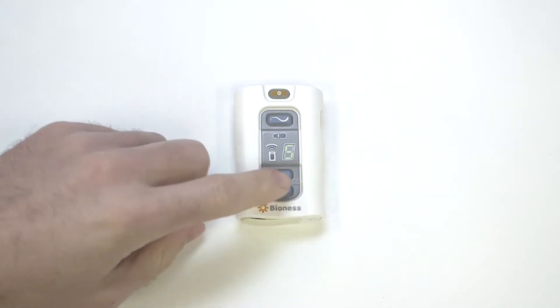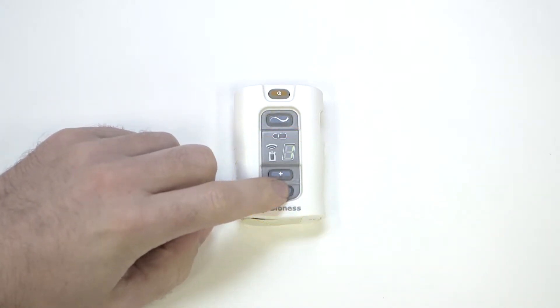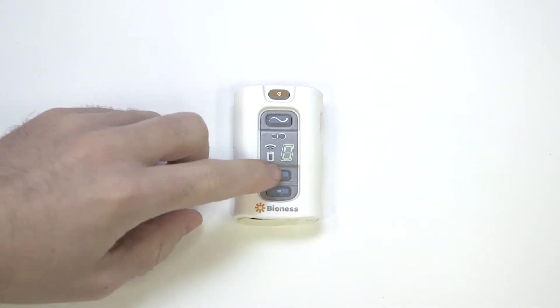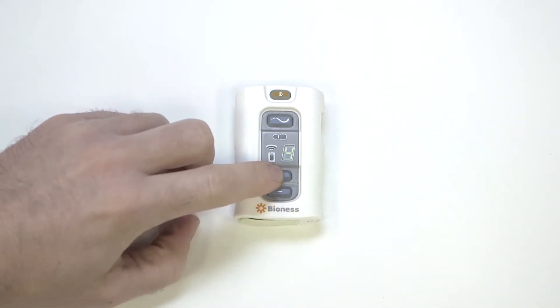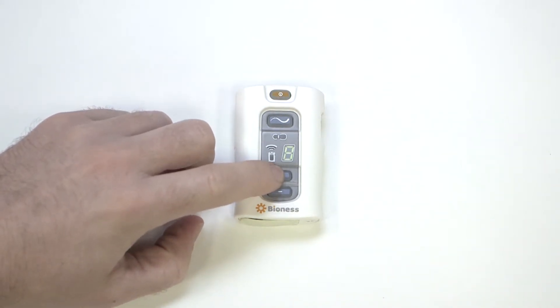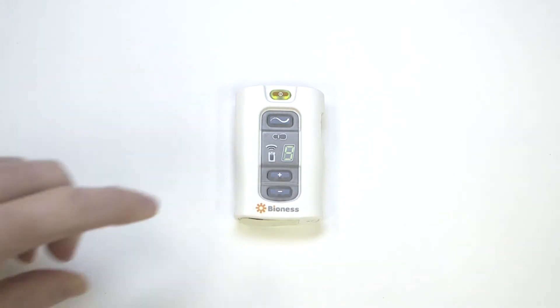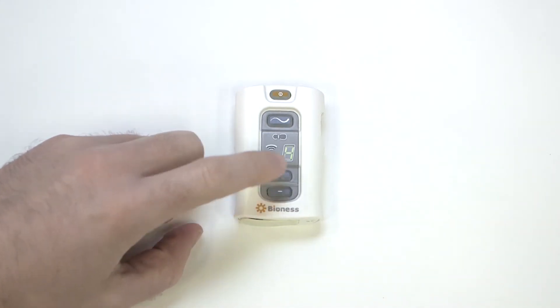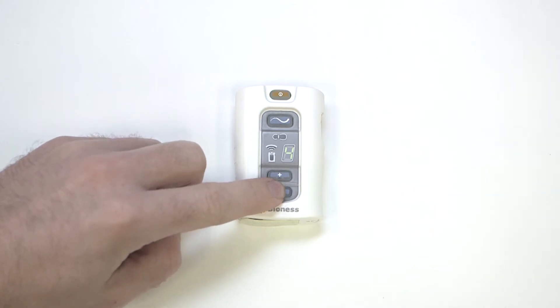Press the plus or minus buttons to increase or decrease the number to the newly desired value. Unless your intensity range has been limited by your clinician, your new default value can range from 0 to 9. Once you reach the number that you would like to be the new default, hold the minus button for 3 seconds and then let go.